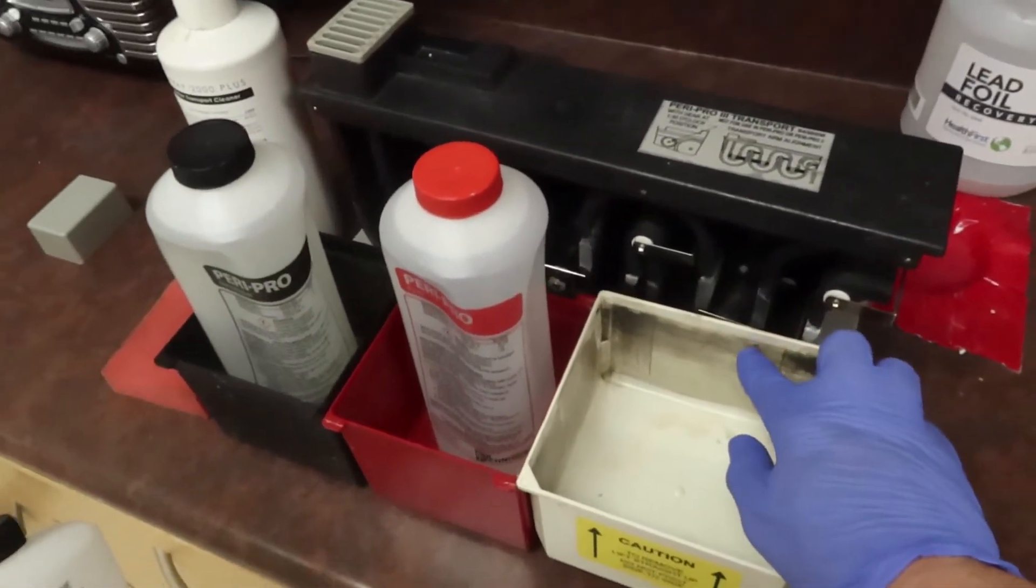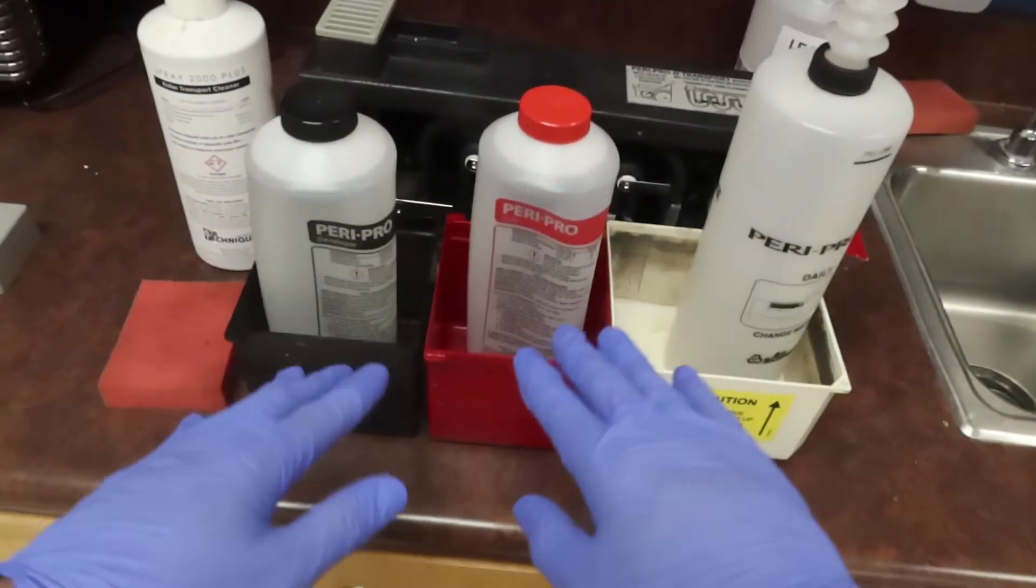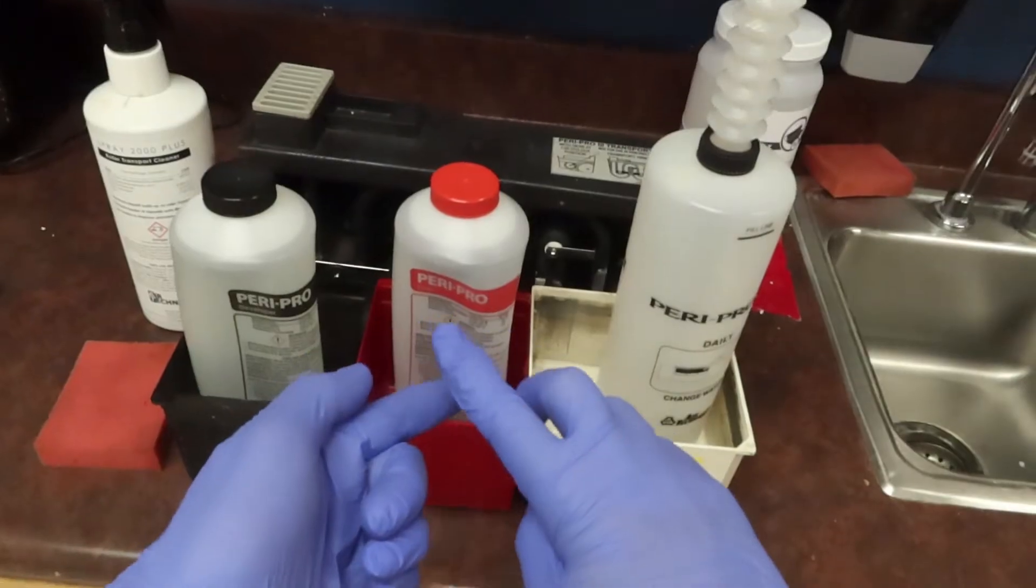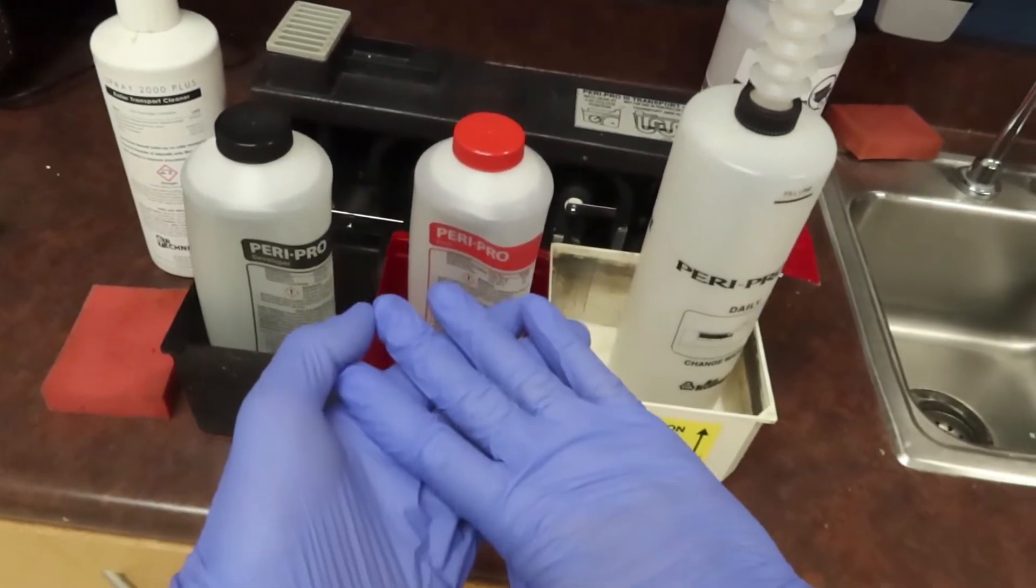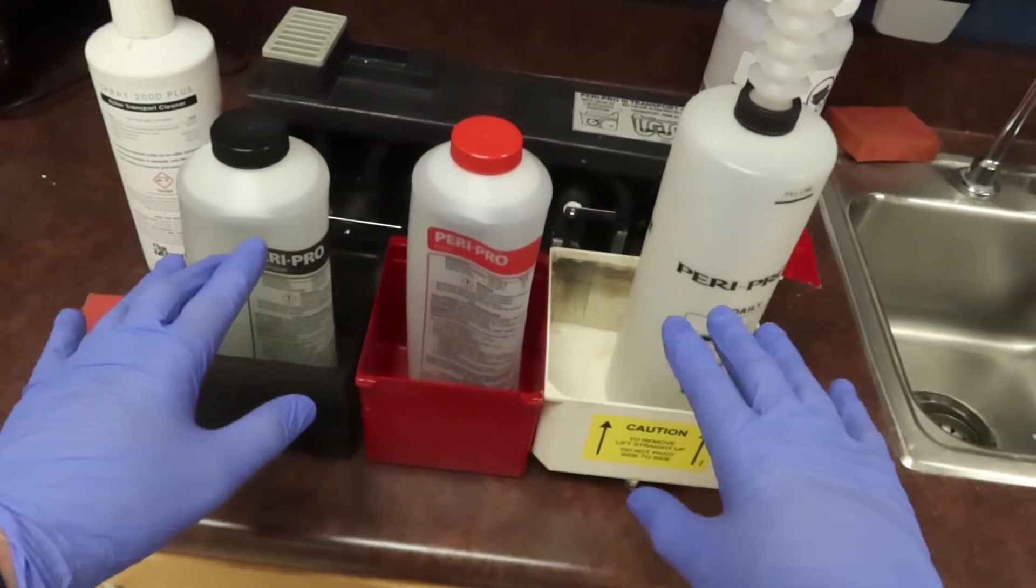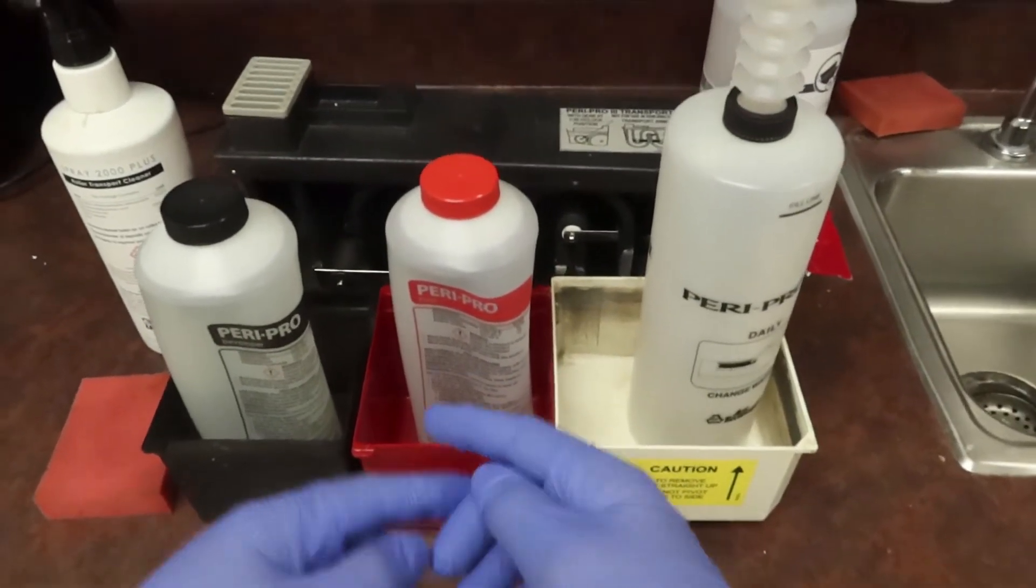There's gonna be a little level on the inner part of this basin that we're gonna work on. We're gonna make sure all these basins are clean, there's no crystals, no leftover bits, no grime, no algae or anything built up in here, so it's always fresh whenever we refill it and start processing x-rays.